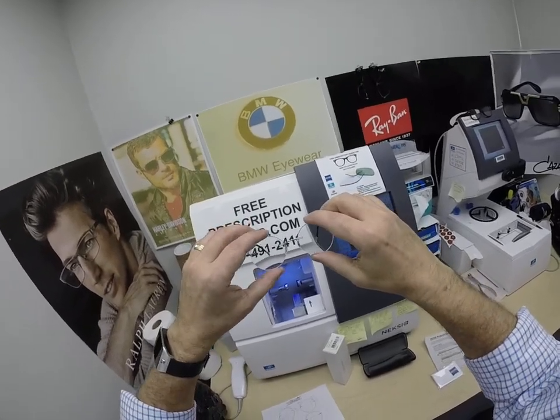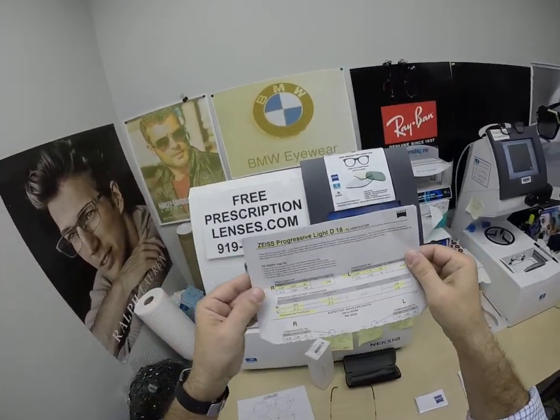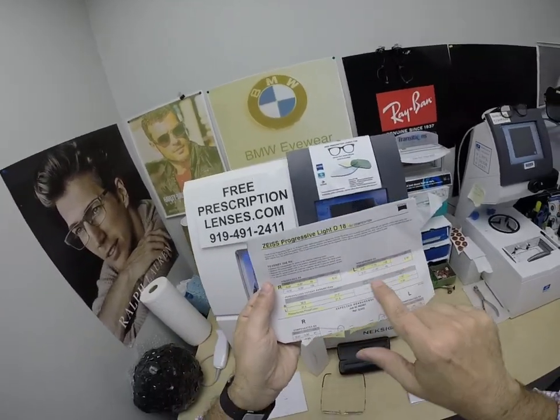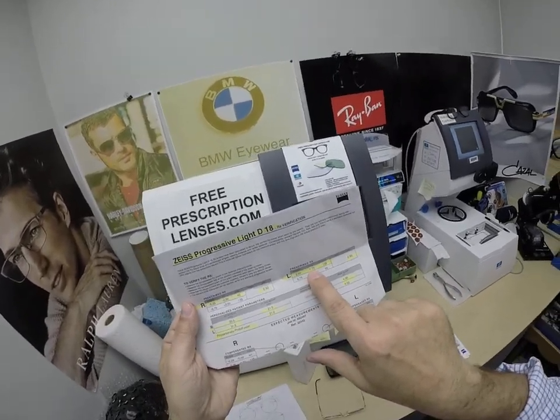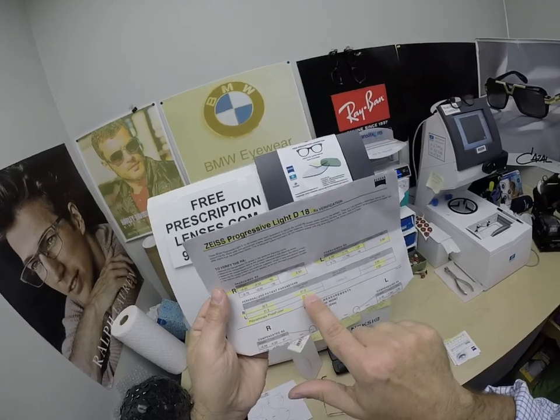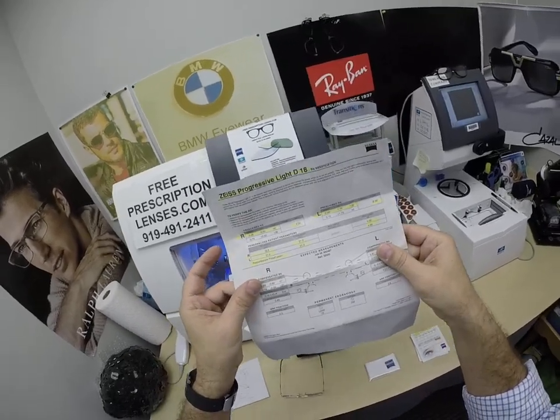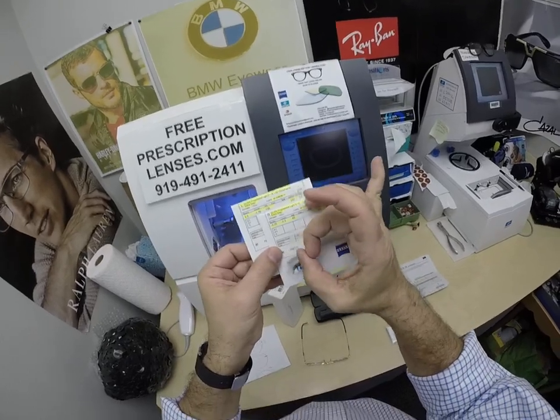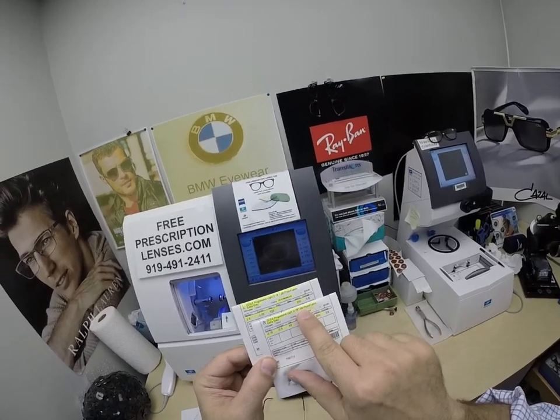Spider wanted the Steve Jobs look and chose the Zeiss Progressive Light D digital free-form progressive lenses. The prescription is highlighted for the right eye — the add power — and the same for the left. Nearsighted for the right eye, farsighted for the left; I assume this is post-cataract. That is very common. The right and left pupillary distance, the optical center height, and the base curve are all noted. Progressive Light D18, refractive index 1.59 polycarbonate.